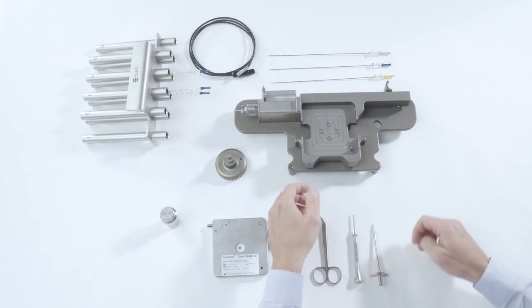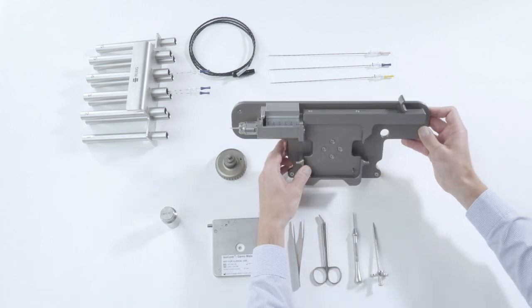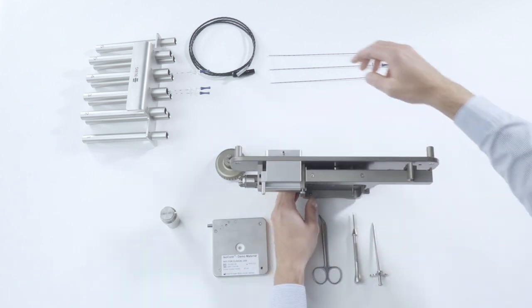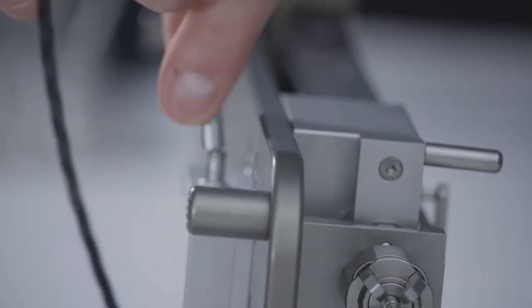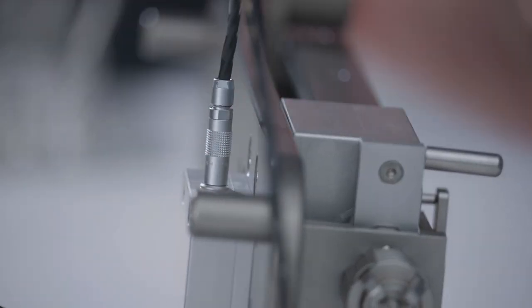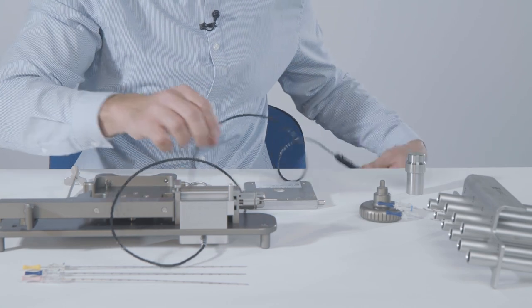Connect the sterile connecting cable to the lighting unit on the back of the NLS. Align the red dots on the cable and the lighting unit. The cable can now be connected to the power supply.